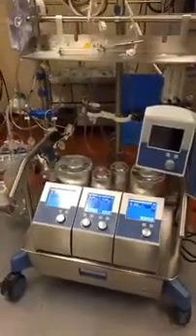The machine is used to support the patient during open heart surgery. While the surgeon is repairing either a valve in the heart, or perhaps doing some cardiac bypasses, or working on the aorta, the heart is usually open and exposed and is usually stopped. So part of our job is to actually stop the heart.